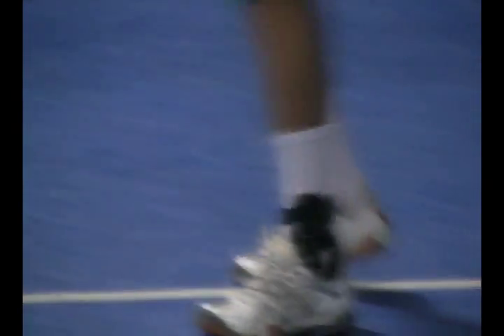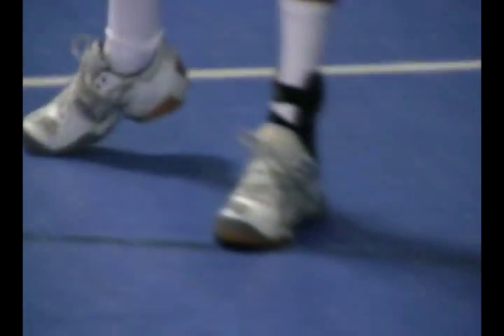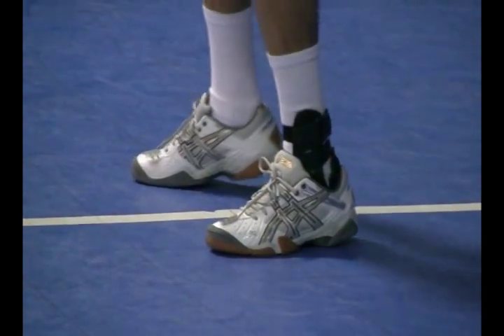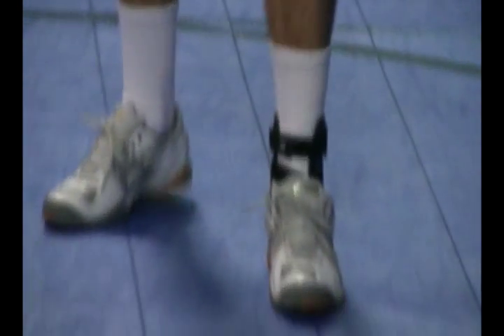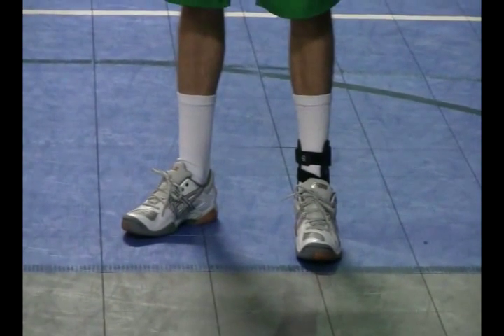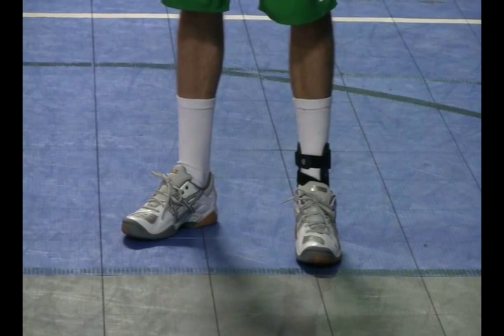It looks like a lot smaller of a brace, and it's definitely a lot smaller. It's really, really light, and it's been engineered or designed by orthopedics — German engineers — so you know it's good. So that's why it's so expensive.